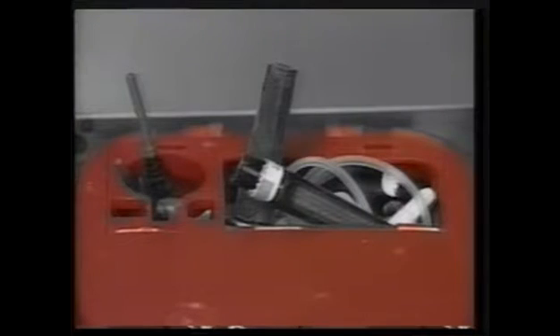Perhaps the most dangerous flaw of manual open top disposal containers is overfilling. Let's look at how the AND system automatically eliminates this problem. As you can see from this diagram, the AND container is divided into three zones: first, the automatic zone; next, the safety or neutral zone; and finally, the danger zone.